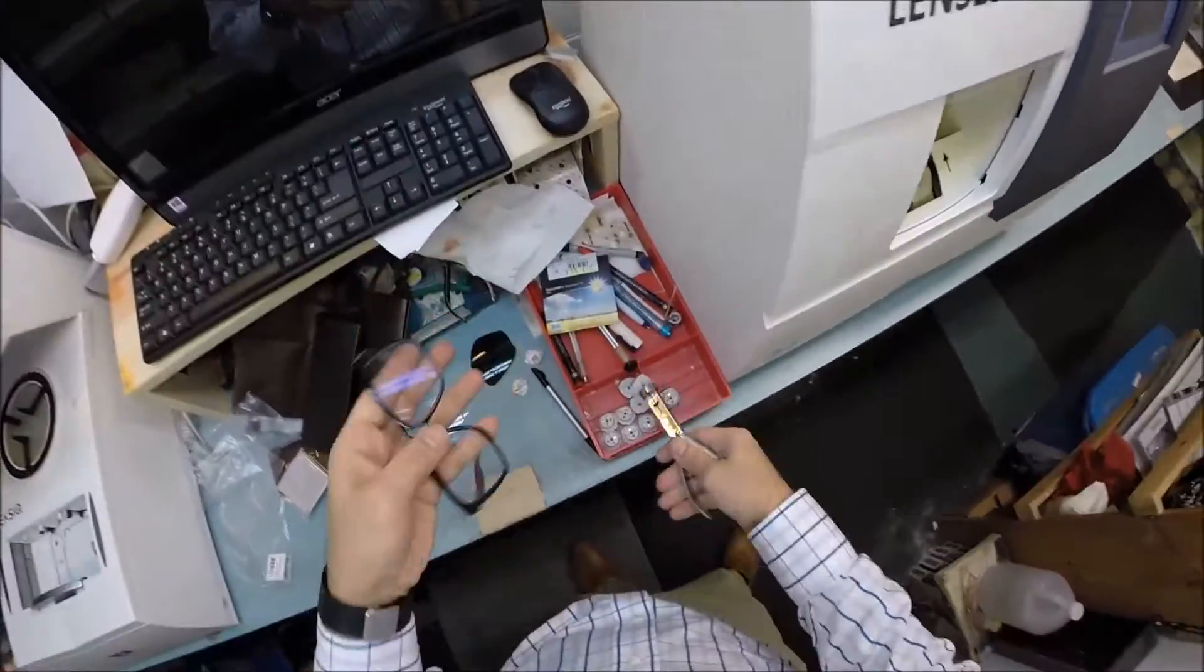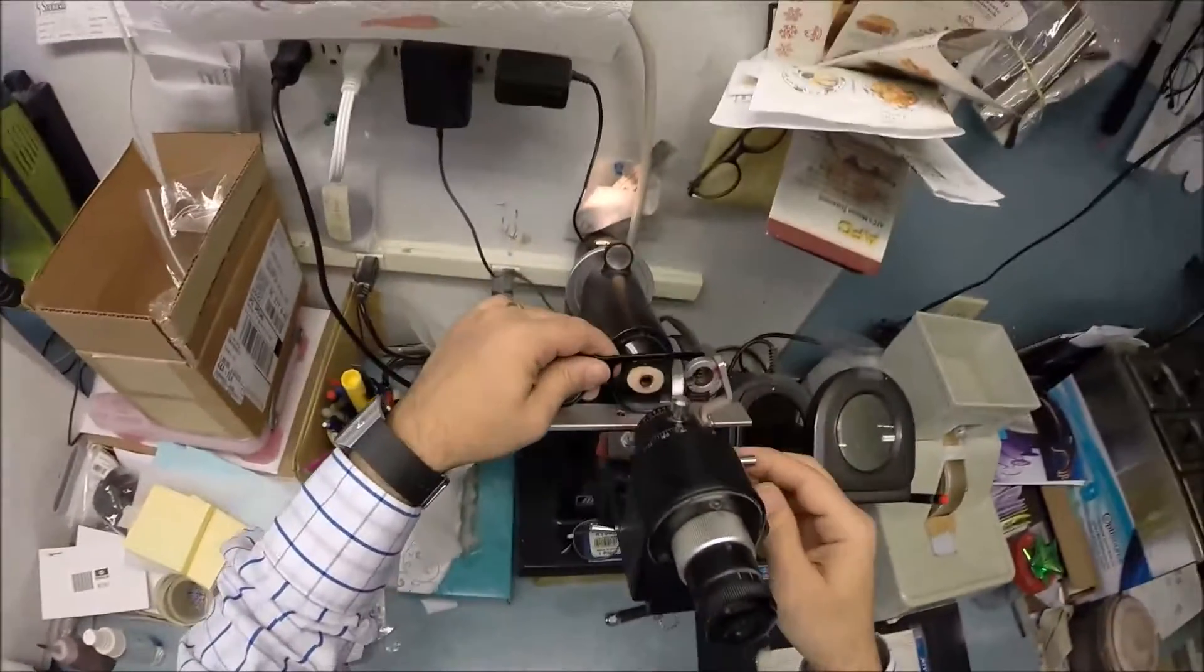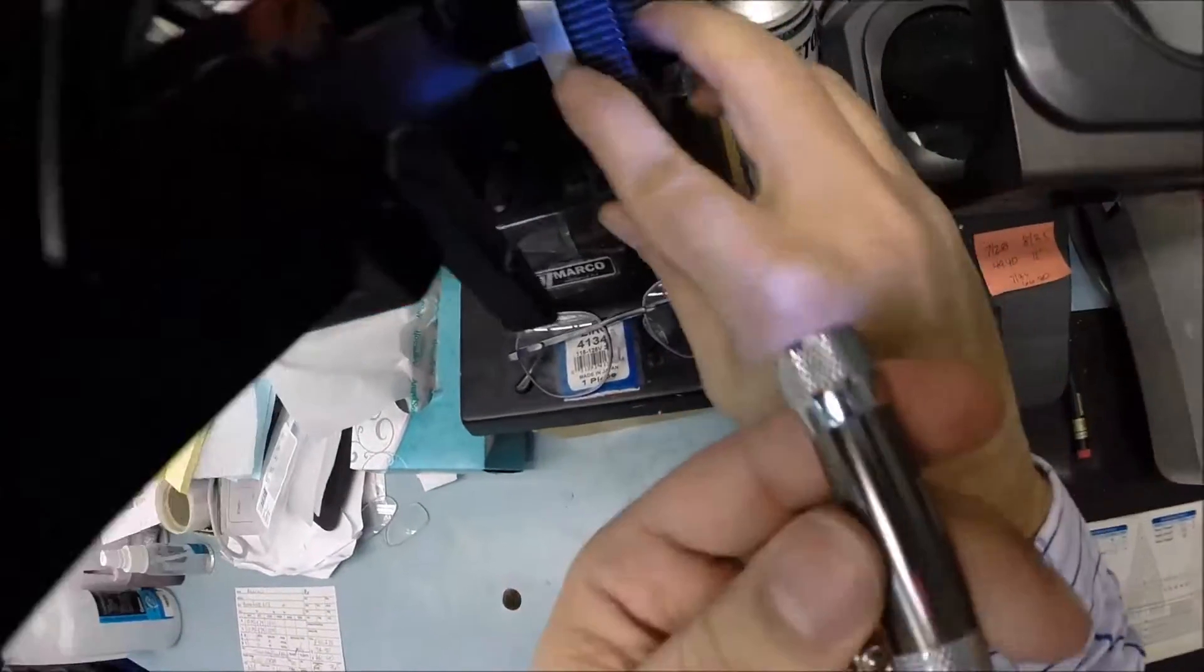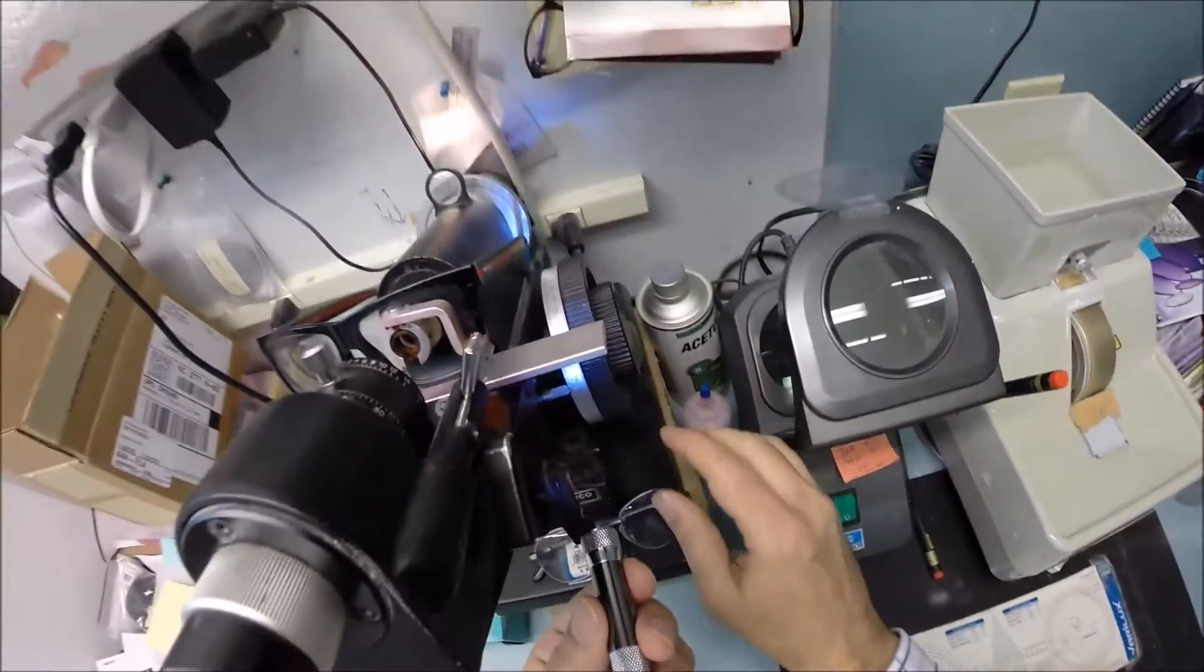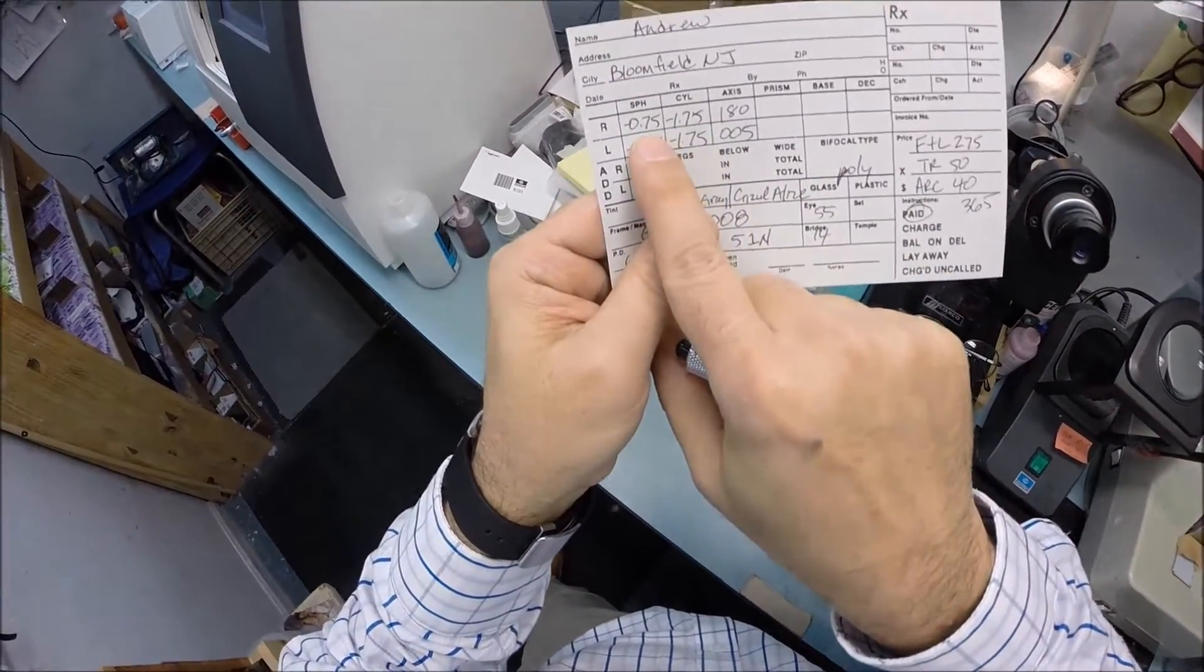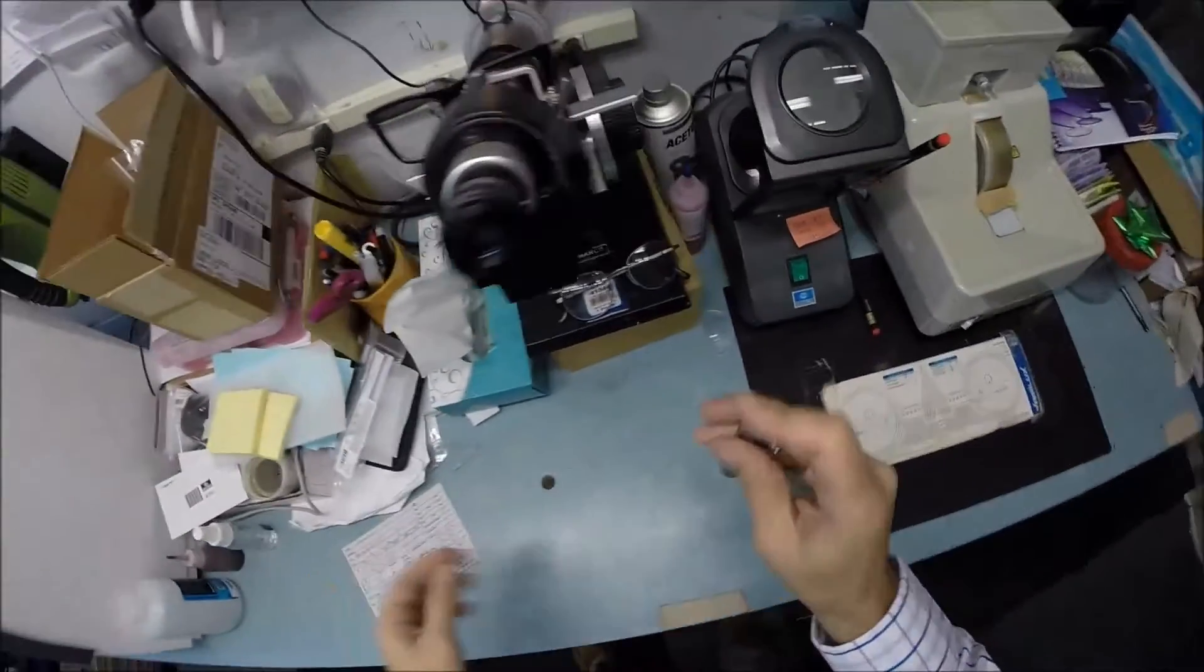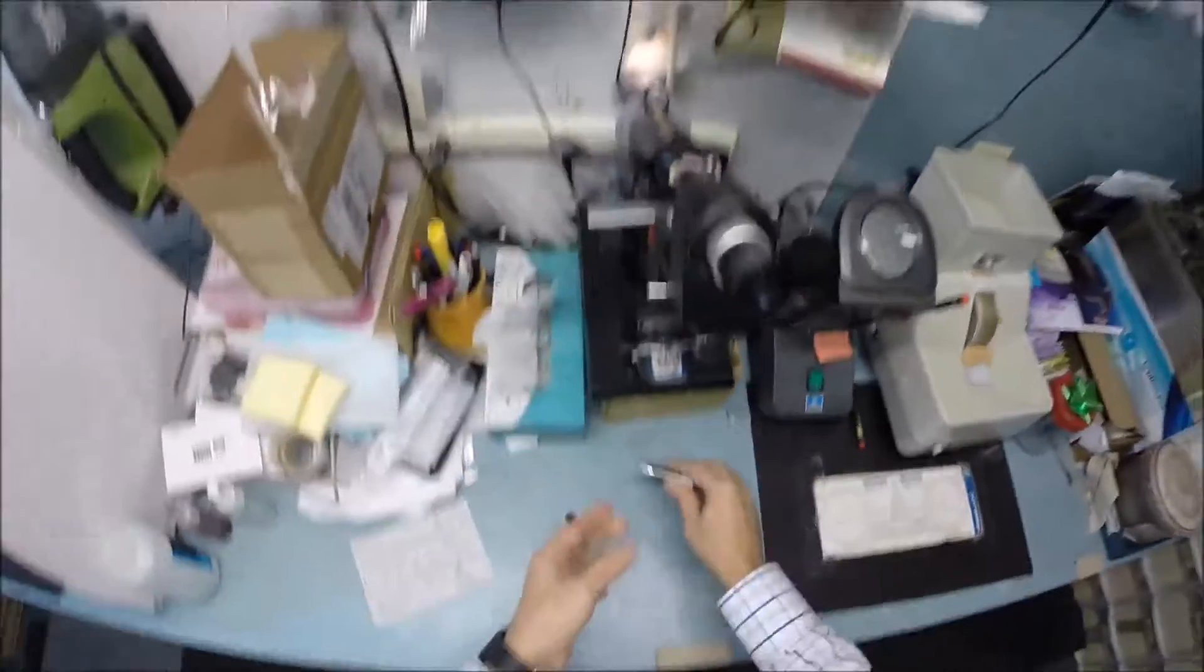So let me take this block off. It is no longer needed. Get the excess moisture off the lens. I'm going to measure this. I'm going to put the axis wheel on five, spin that, and I'm getting minus 75, which is one tick mark away from one. Check the astigmatism correction. And we're at minus 250. So that is made perfectly. Remember high school algebra, you add the two numbers together. If someone had borrowed 75 cents and then they borrowed another dollar and 75, they would owe you $2 and 50 cents. That is where we're at exactly halfway between two and three. So that is made correctly.